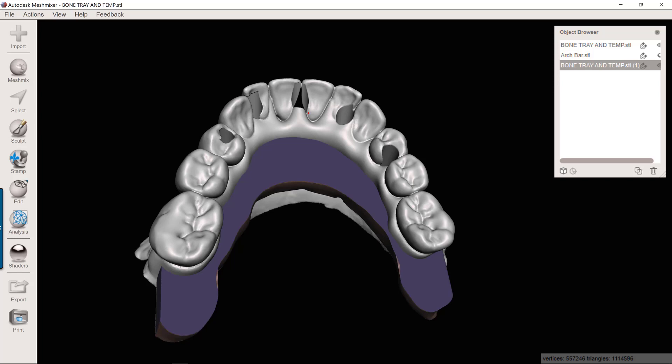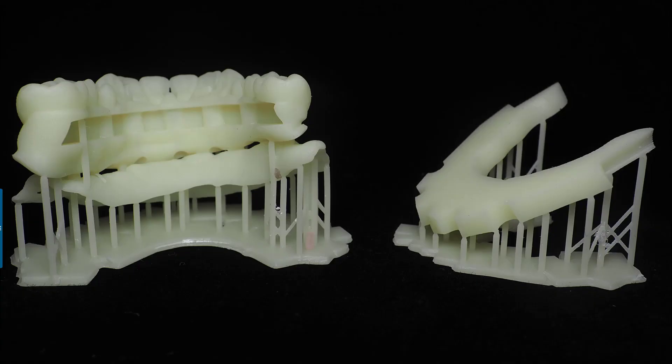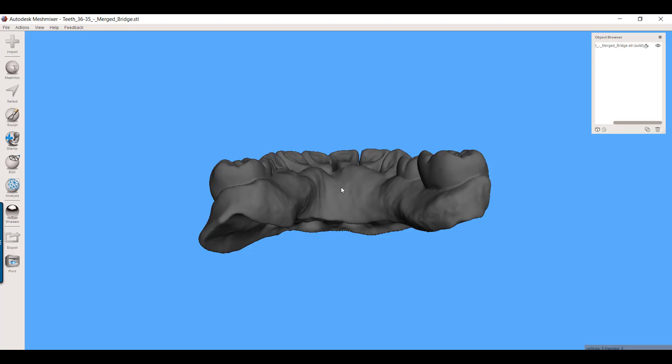So what I'm going to show you in the following video is how do you make the restoration ahead of time and then create a precision slot for the Trilor bar to slide into, and also create a template to be able to design that Trilor bar ahead of time. Once you have that designed ahead of time, you just print off the template and you print off the temporary. You trim the Trilor to exactly match the template, and then it's going to slide right into this. Now you have it all made ahead of time, no chairside conversions to do.